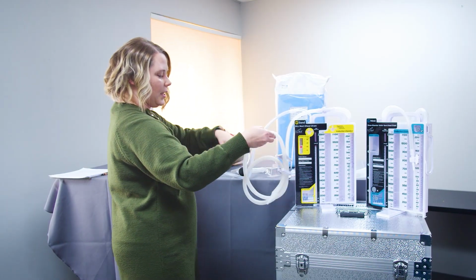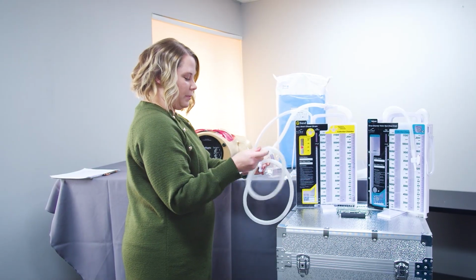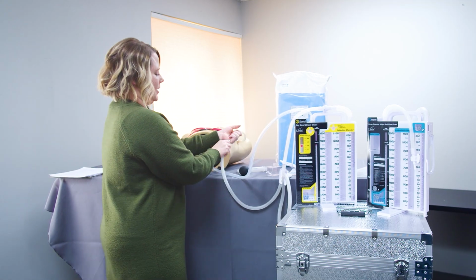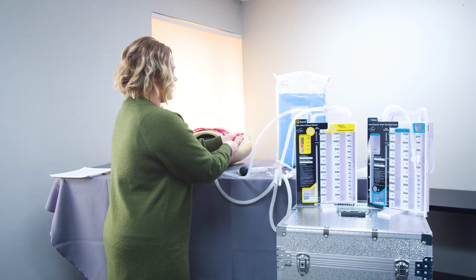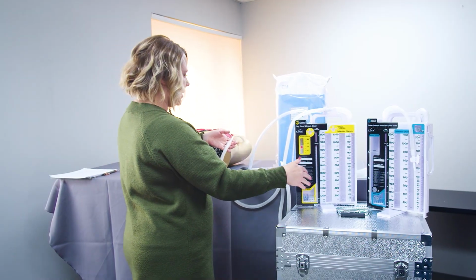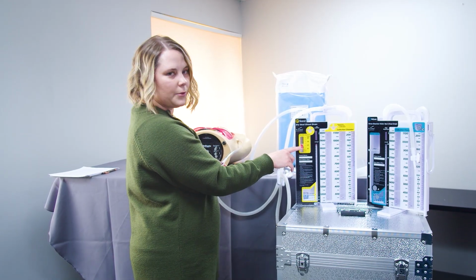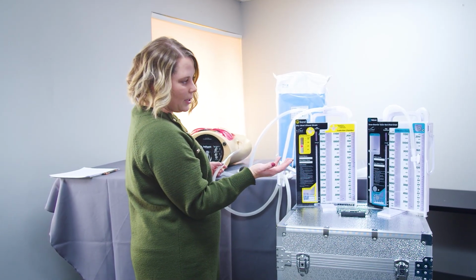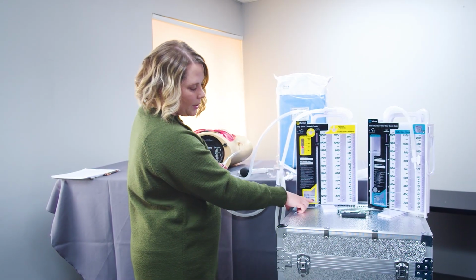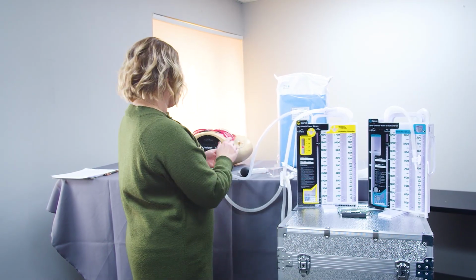So I'm going to take my chest tube drainage tubing, and I'm going to use a little force here and connect it up to the drainage collection tubing going to our canister that's already preset. I also already have the suction control set to about -20, which is fairly typical, but you'll do that based off of the orders from the provider or what you're simulating. Our water seal chamber is also already filled up. As I mentioned, these are previously set up.